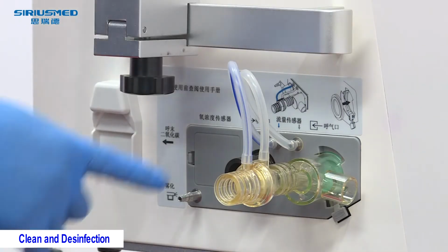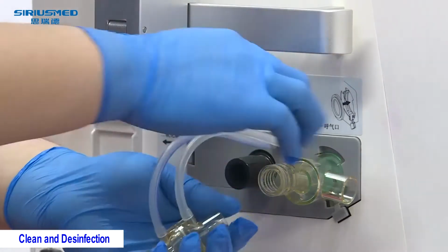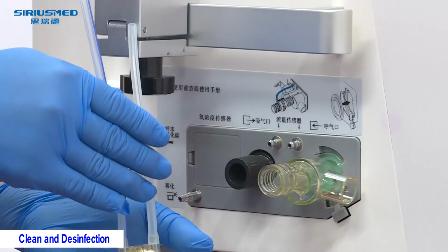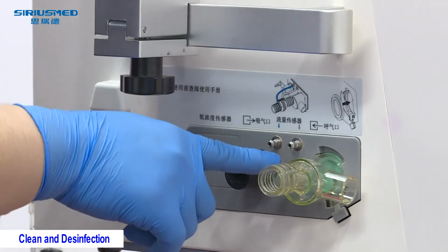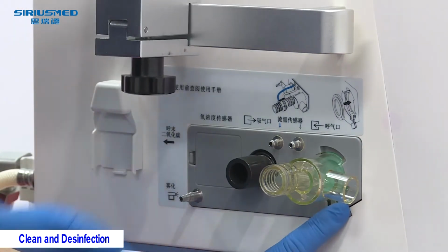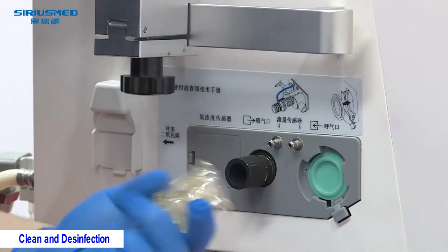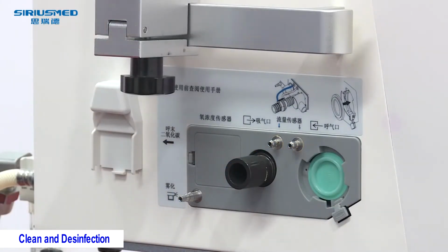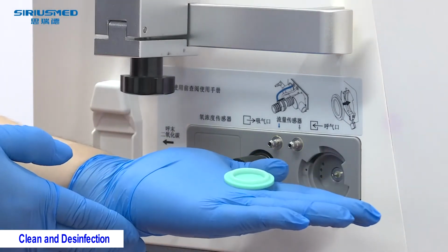Exhalation valve. In this part, we need to take off the flow sensor probe first, and then take off the valve. First, press this button and turn upright the PEEP valve and take it off. And then pick this diaphragm off.